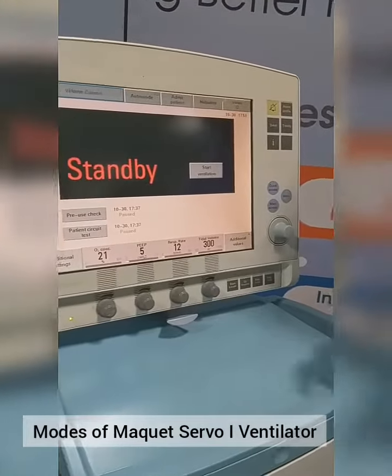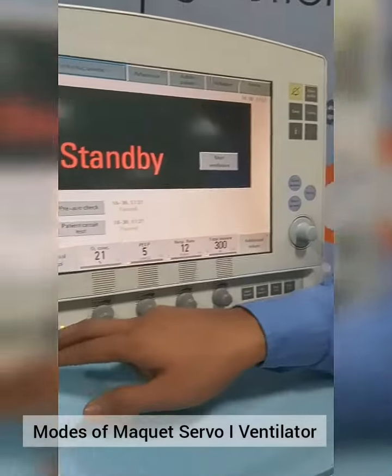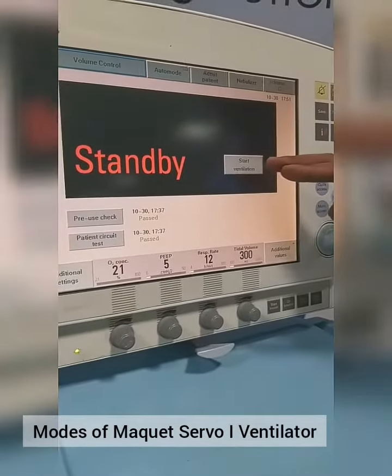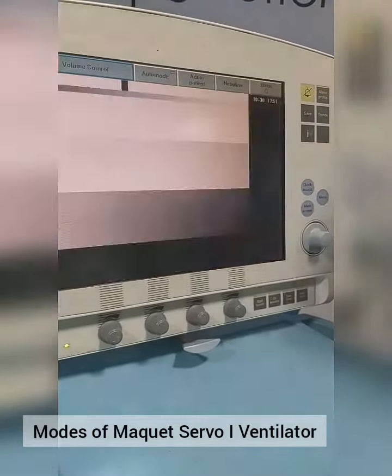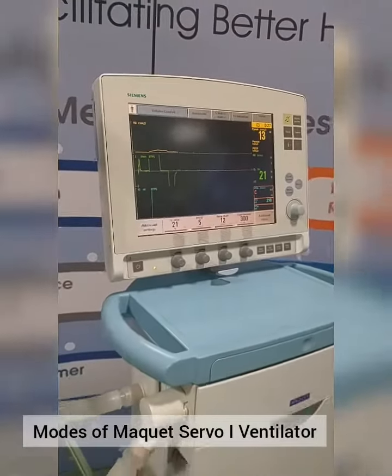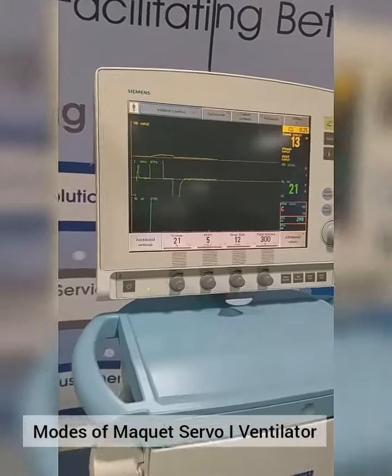Now we will see the Ventilation. For Ventilation, we can start from this Soft Key, or we can do it from Touch. So now Ventilation is started.